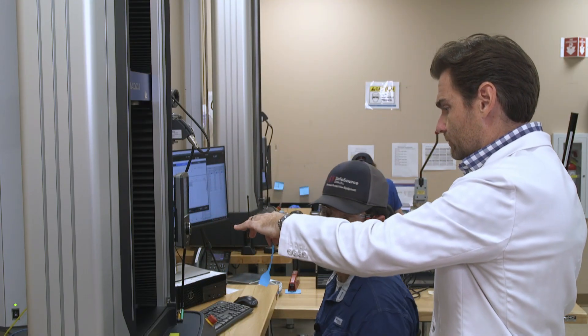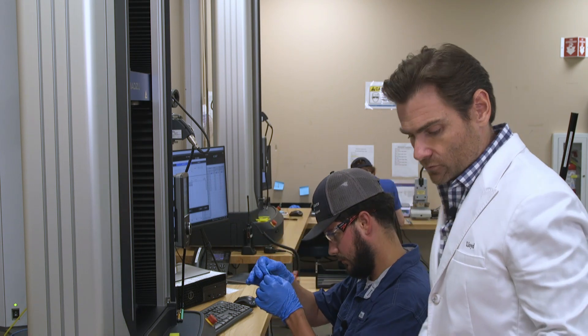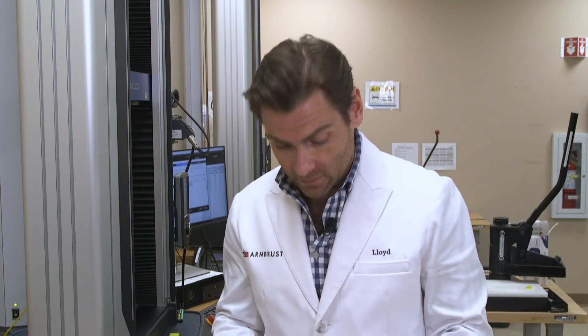This is the dog bone cut — I'm just going to measure that. I'll say, Litis, I don't love your blue. But it's a good glove feel, good hand feel — hand feel 9 out of 10.